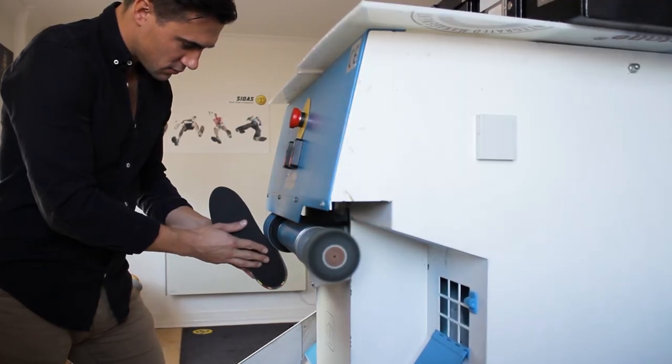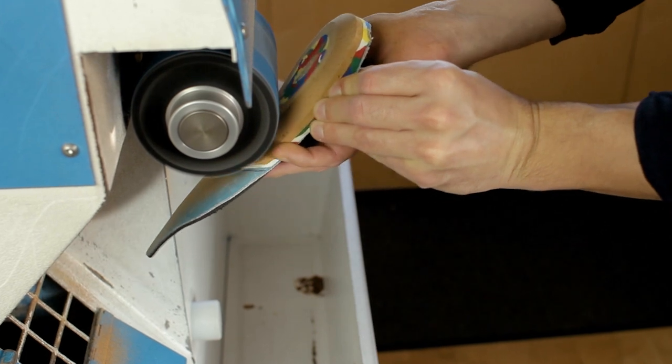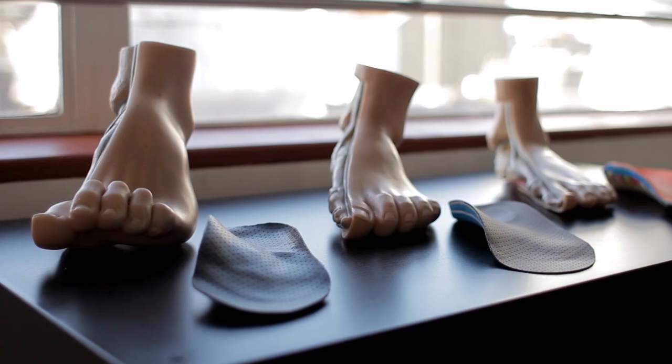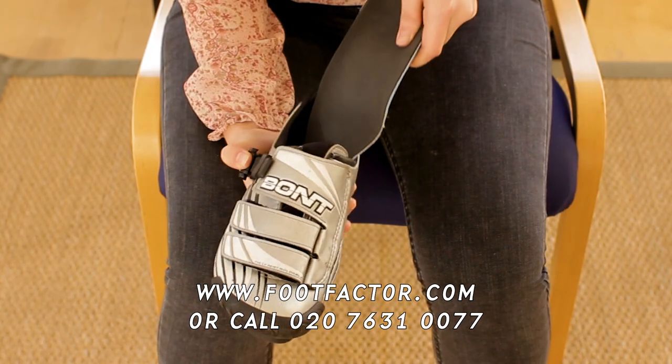Finally, each orthotic is individually ground and shaped for a perfect custom fit. 90 minutes, that's all it takes for you to walk away with your orthotics in place.